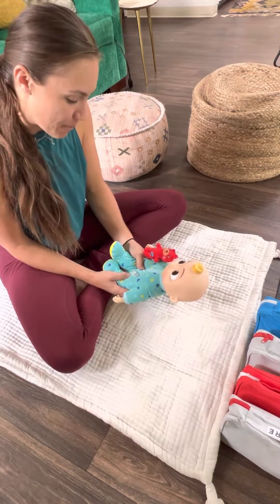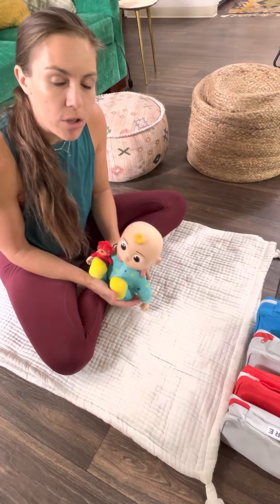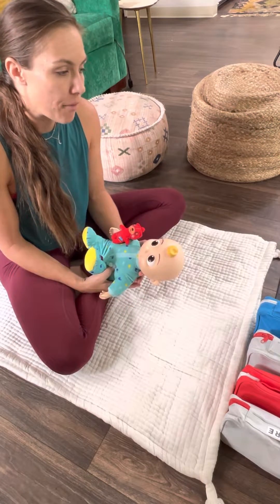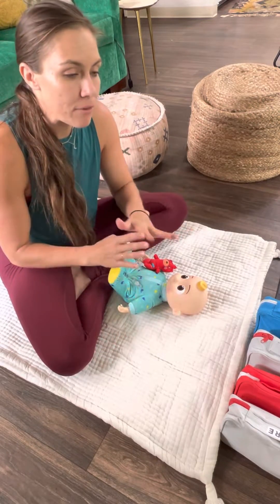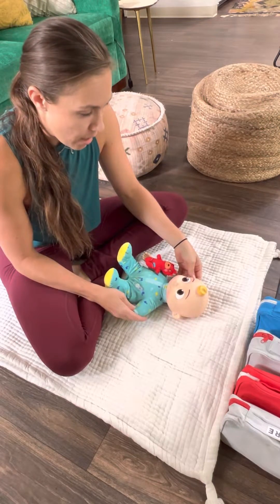Hi, I'm Andy. I am Benjamin's mom. Thanks so much for being here. I'm going to show you today how to use the VNS magnet in the event that Benjamin is having seizures. The VNS magnet is definitely our first round of defense because sometimes that could stop them in their tracks and you don't have to do anything medically about them, giving him medications or anything, which is ideal.